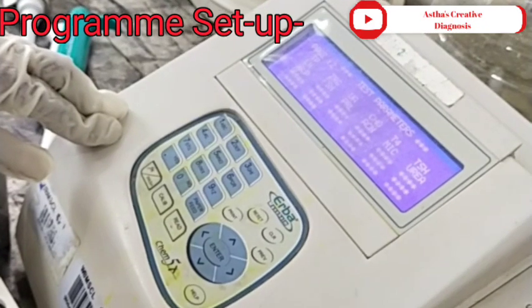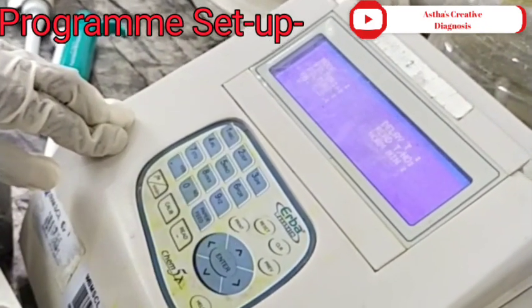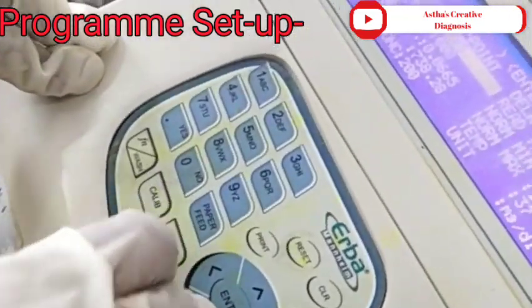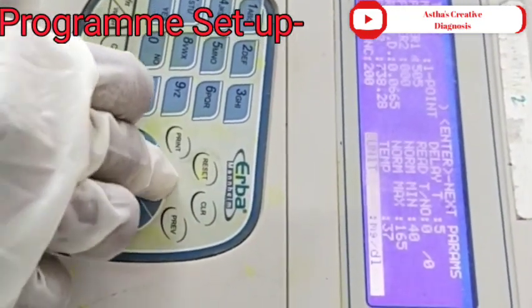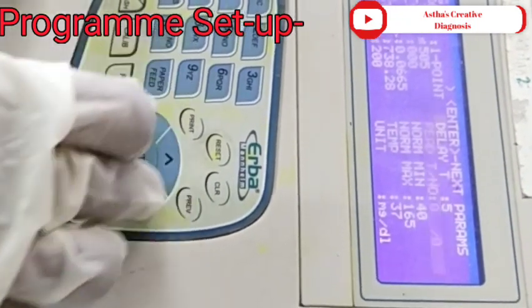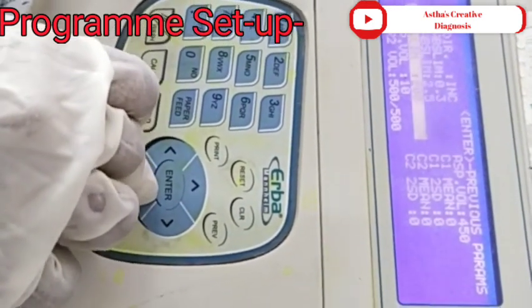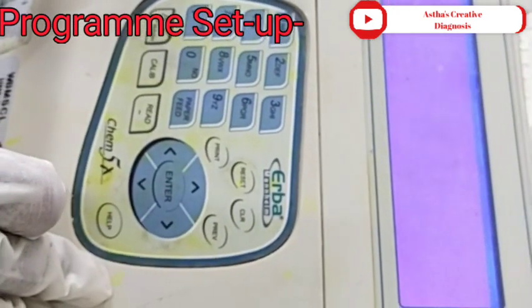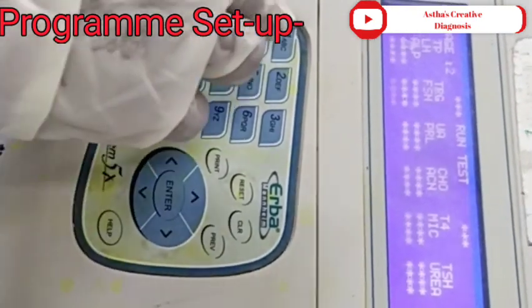Enter into TRG — that means triglyceride. Method: endpoint. Wavelength: 505 nanometers. Temperature: 37 degrees Celsius. Standard concentration: 200 mg/dL. Working reagent: 1 mL. Sample or standard volume: 10 µL. Linearity: up to 800 mg/dL. Slope: increase. Reference value: 40 to 165 mg/dL.